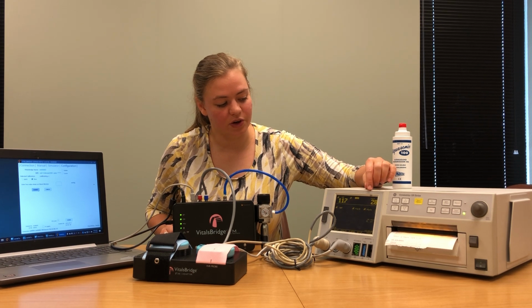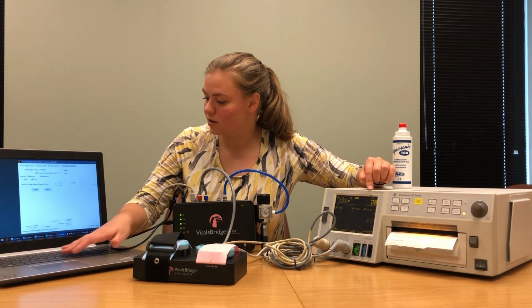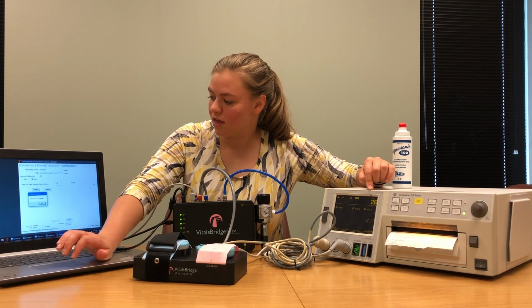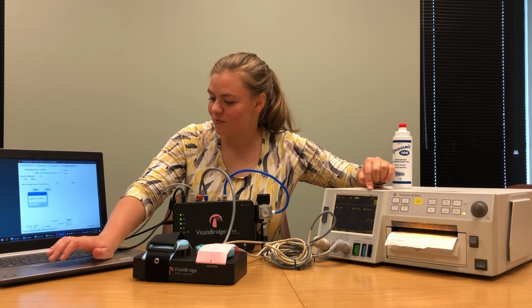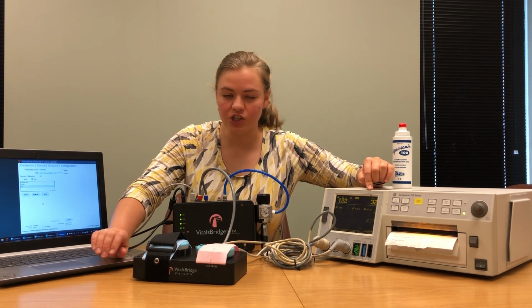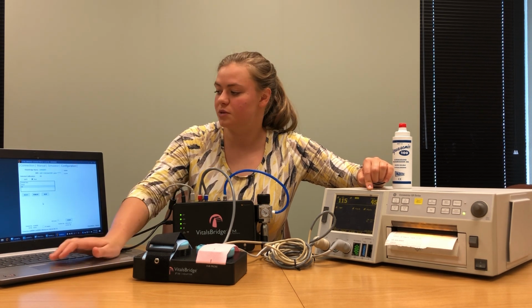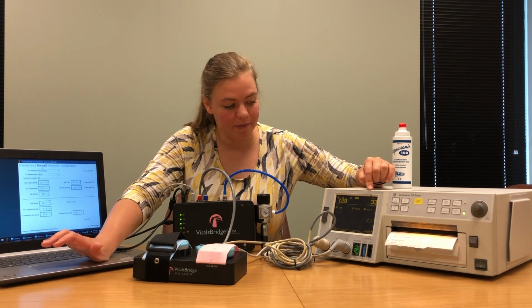And you can see that the TOCO value continues to drop. It looks pretty stable there at 28. So we will put in 28 for this value here. And our calibration is complete. When you finish your calibration, make sure that the selected calibration is the calibration you've just performed, and then navigate back to the manual tab.